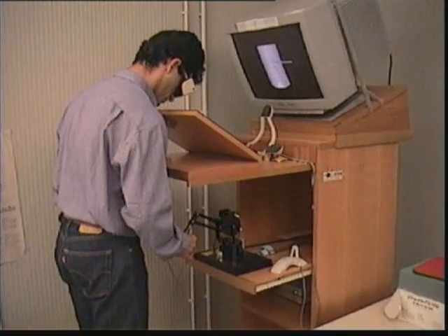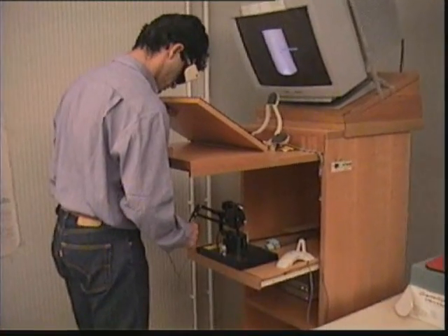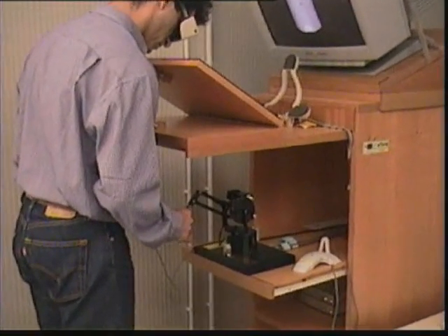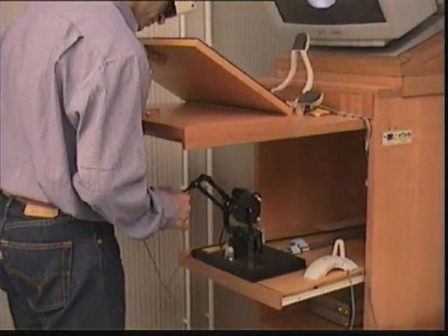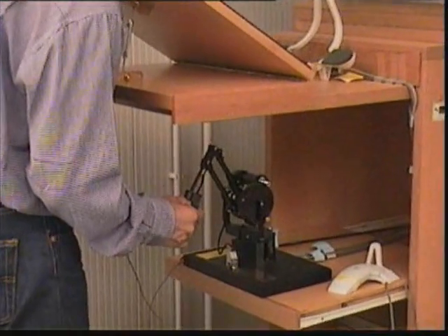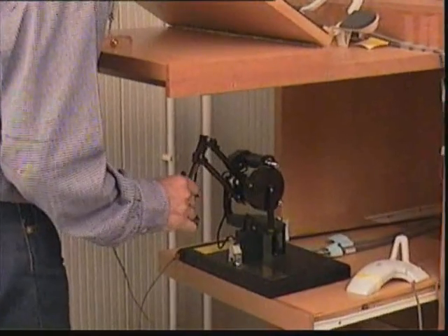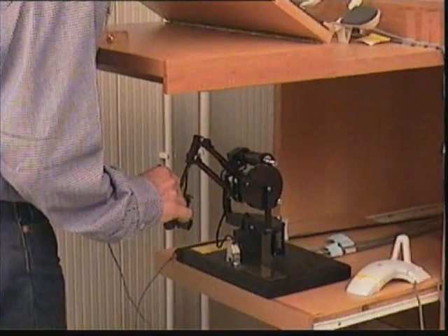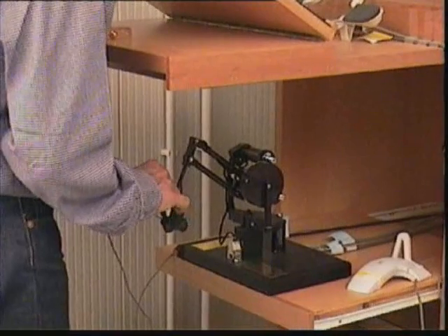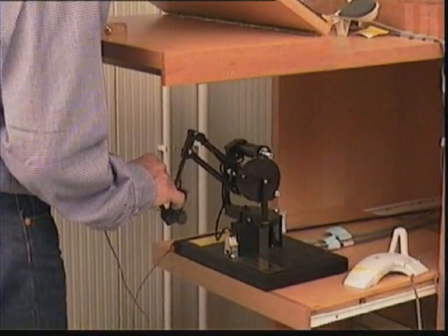As the most important feedback required to perform precise catheter insertion is haptic feedback, the system employs a phantom force display to simulate a virtual needle.